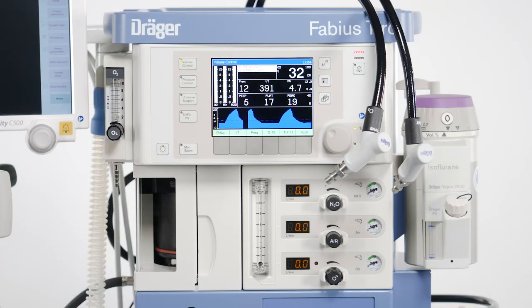In case both the central gas supply fails and no cylinders are available, the device will sound an alarm, but the piston ventilator will continue to work.